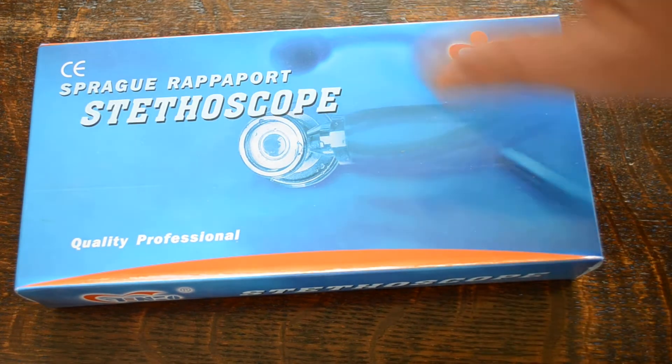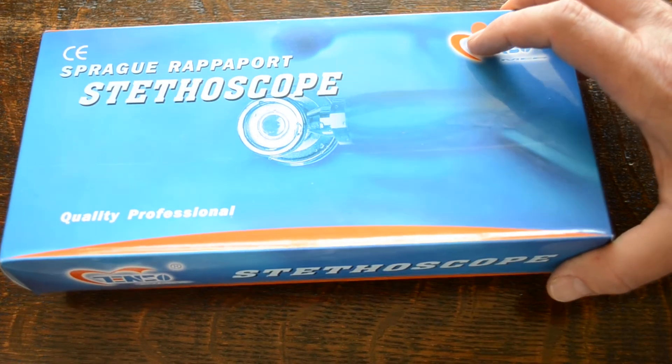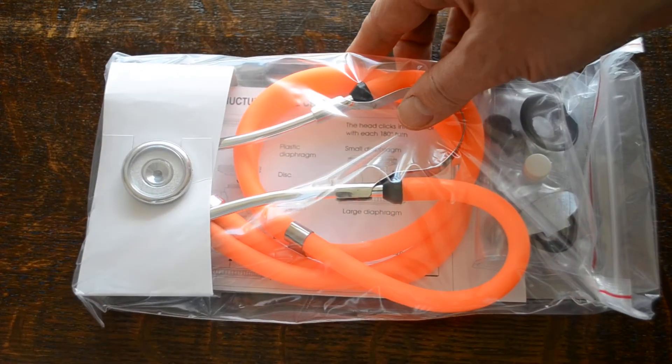It's a CE Marks Sprague Rappaport Stethoscope. This is branded as a five-in-one. If we show you the pack contents, there you go.